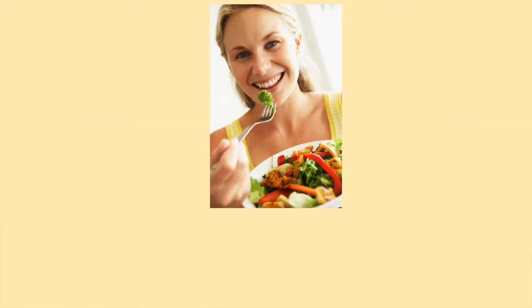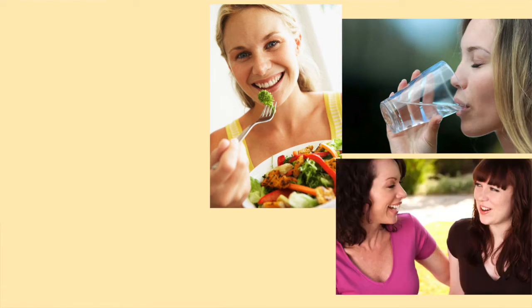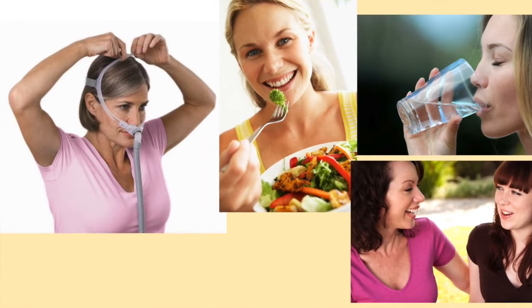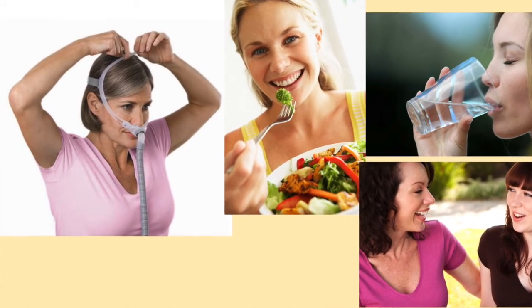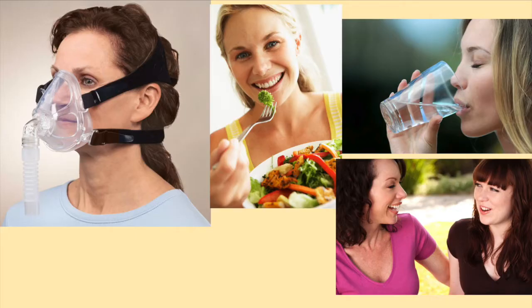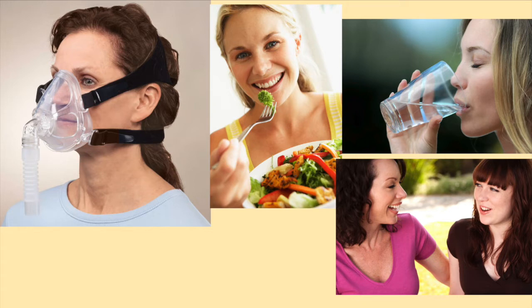In order to eat, drink, and talk, a person needs to remove the non-invasive ventilation mask. If a person on non-invasive ventilation cannot breathe without the ventilator, this means the person will have to choose between breathing and being able to eat, drink, or talk.